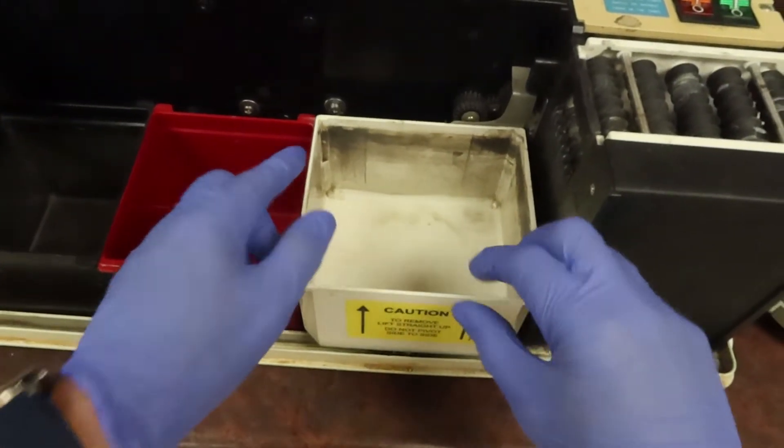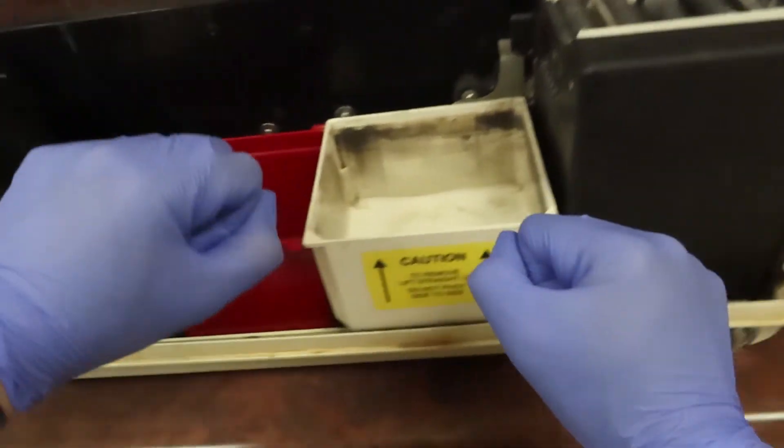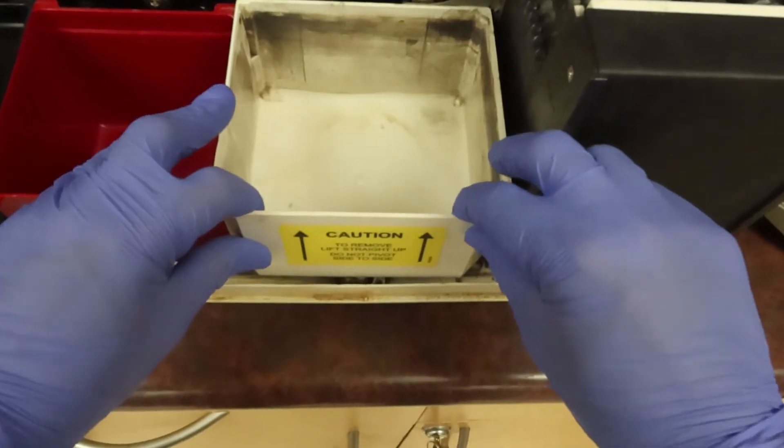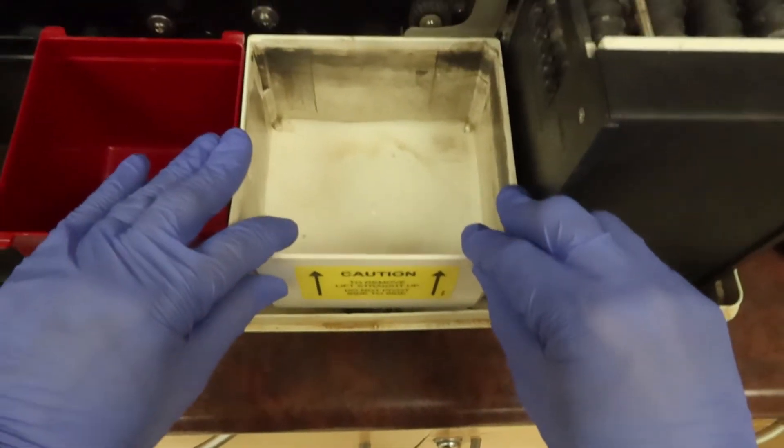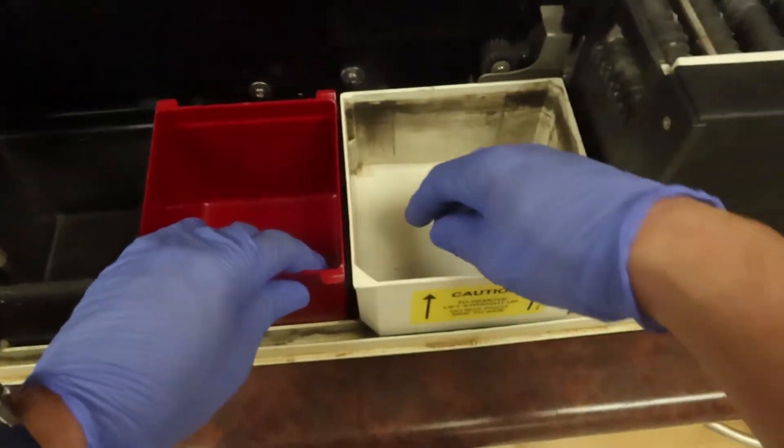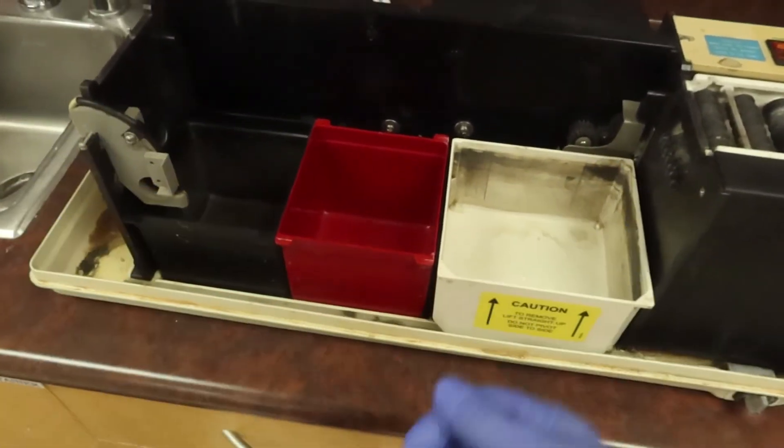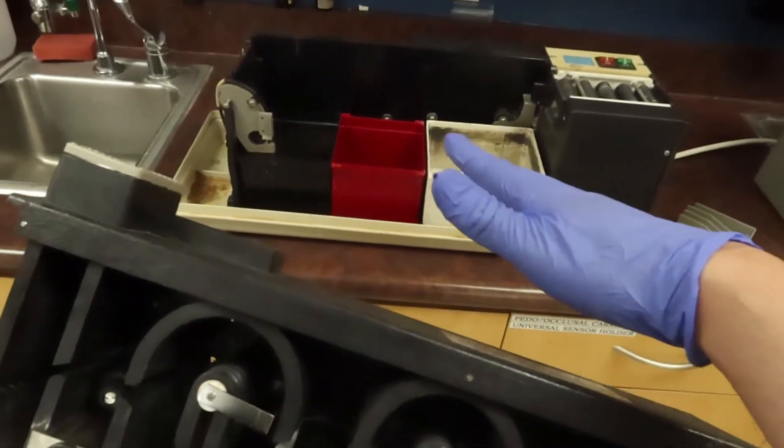When you place this in, we're going to line it up specially and insert it down without doing too much leveraging back and forth. As I push this down to secure in its position, it will snugly fit into place. Now we can start filling up all of our bins with our materials.